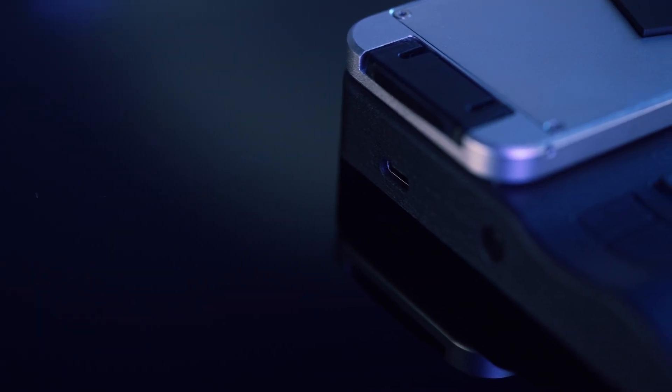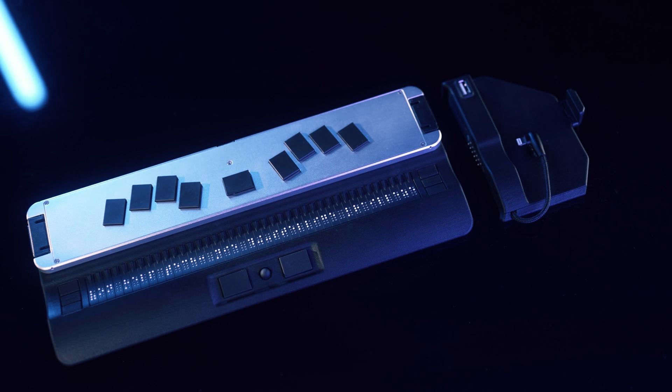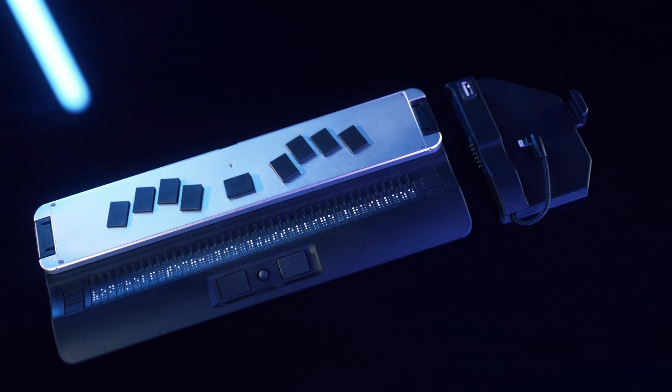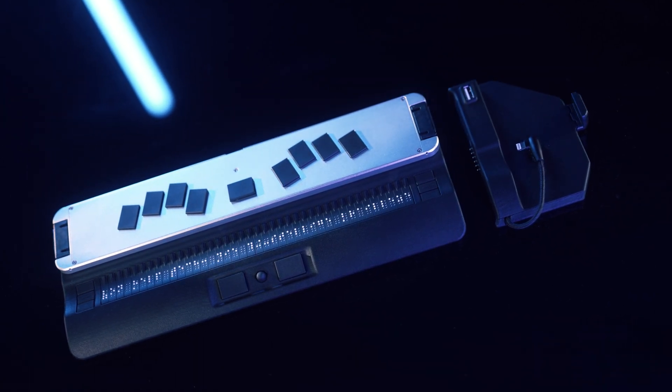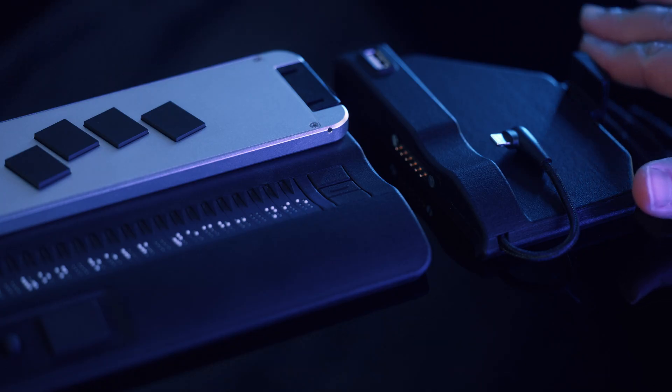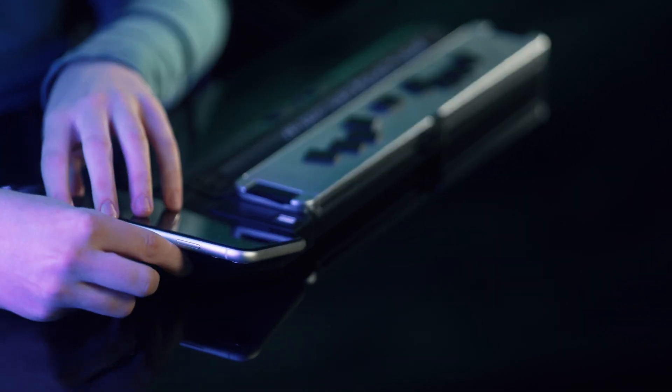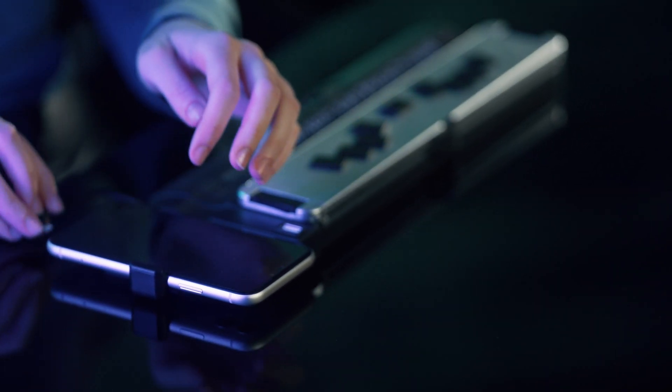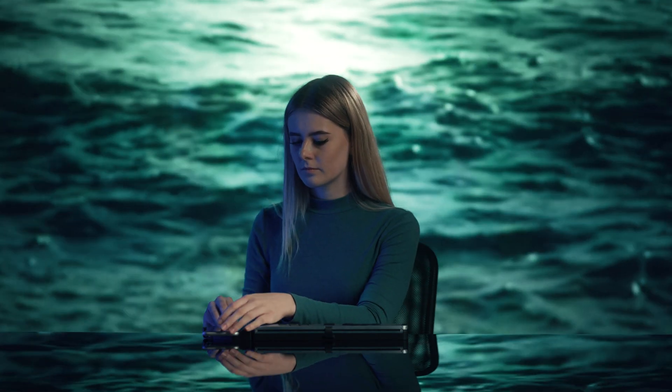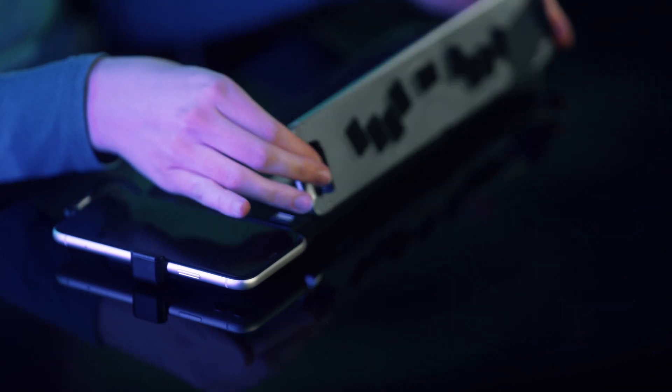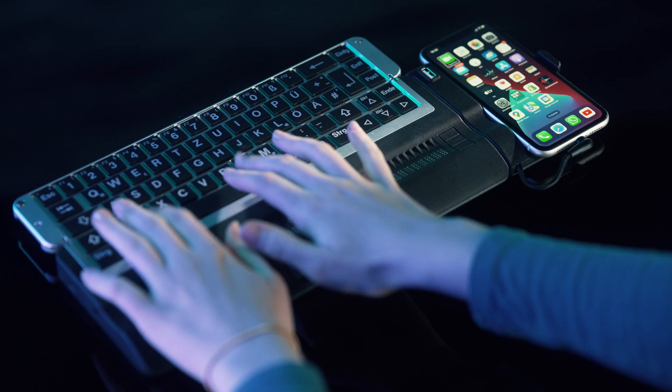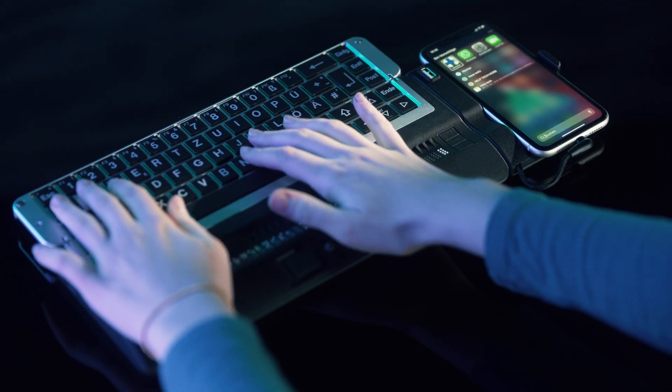Connect the Activator via Bluetooth or USB. Simply dock the smart dock with integrated USB port and insert the iPhone with charging function for the iPhone. Combine it with the power of your iPhone for a new user experience.